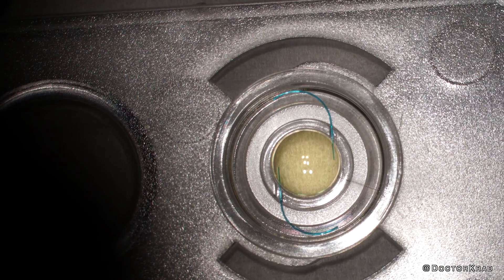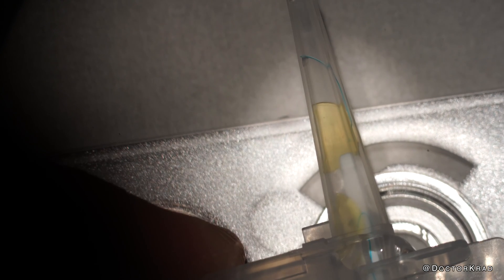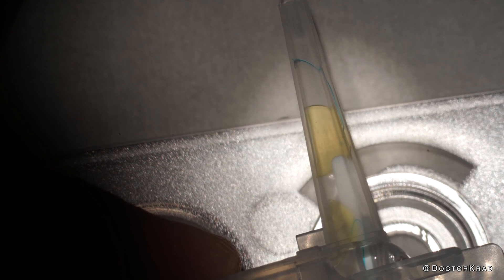Should we try it again? Maybe the third time's the charm. One more try — we're gonna take a light adjustable lens, put it in the EZ28 injector, make sure it's loaded properly... and it's ripped in half. You can see it there. There's no way this light adjustable lens is gonna make it through this injector.